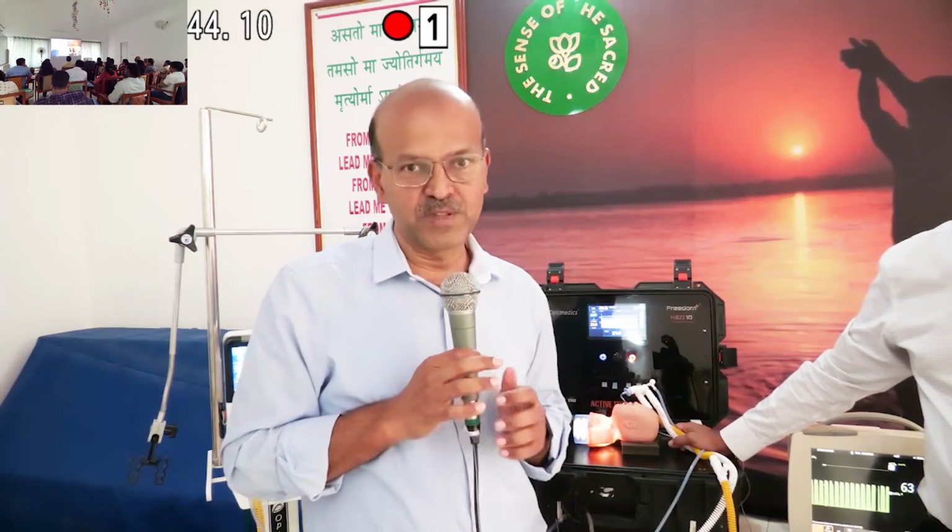Again, these babies, sedation is an option, and I told you volume guarantee may not work. So you may have to switch to SIMV with pressure support or high frequency. Once the pneumothorax has been drained, you can switch back to volume guarantee. So these are temporizing measures. So I hope this is clear. Any questions?